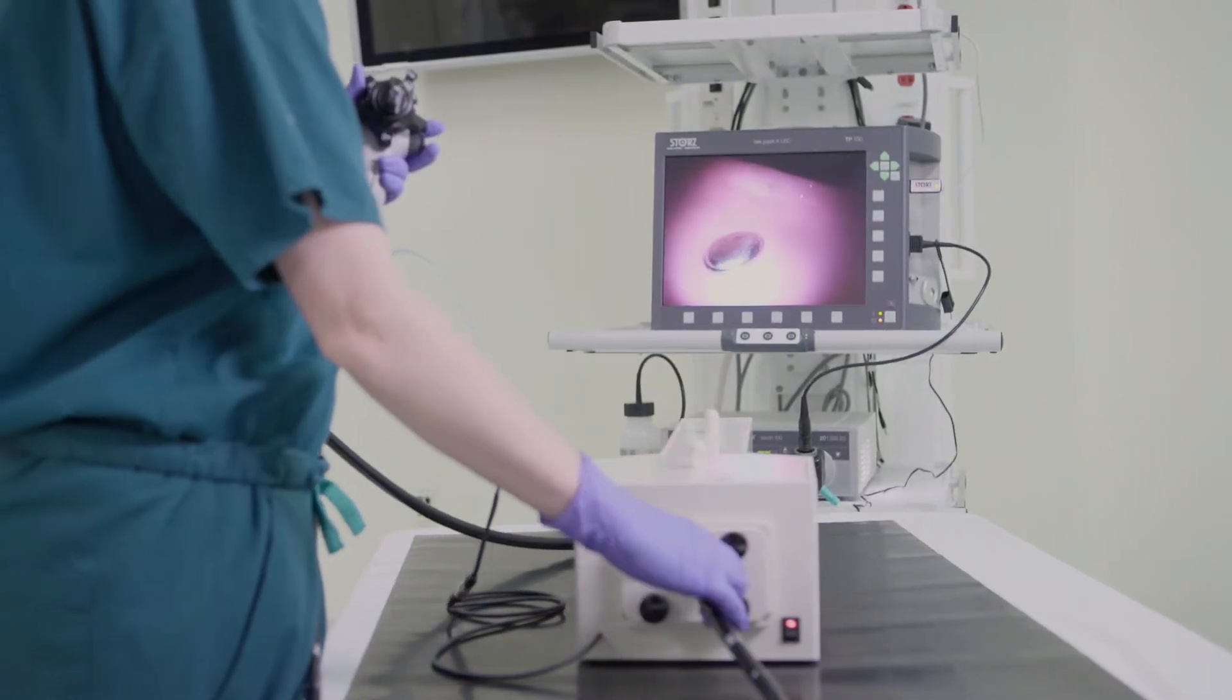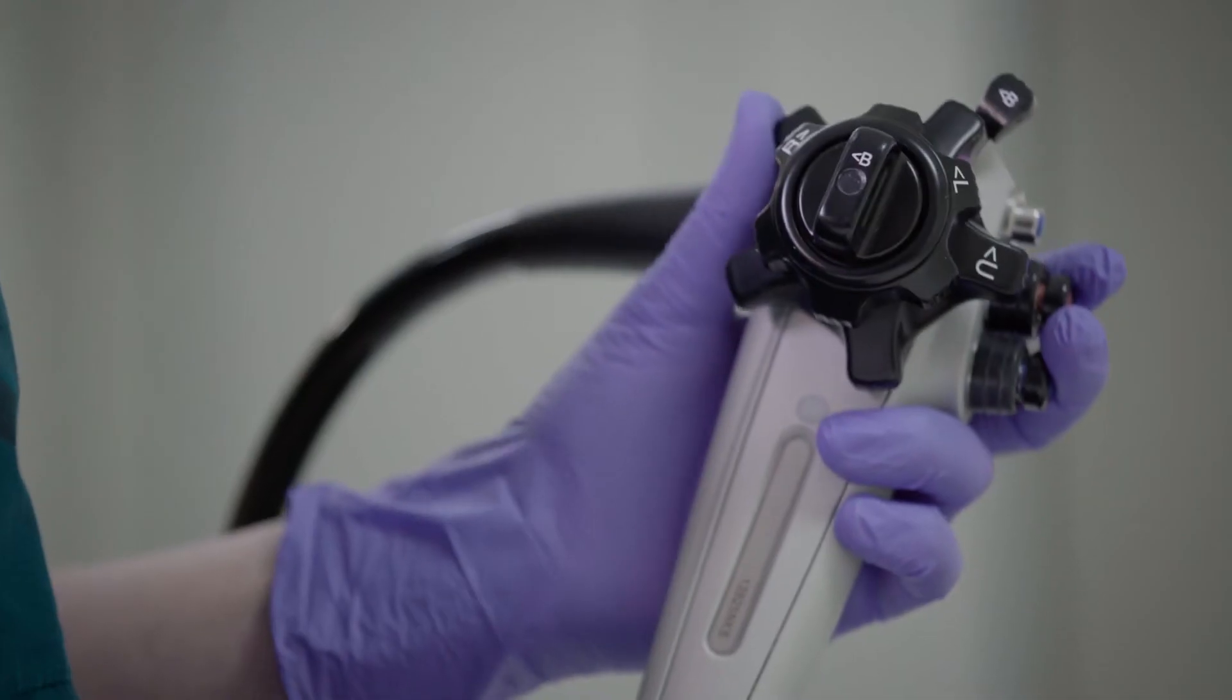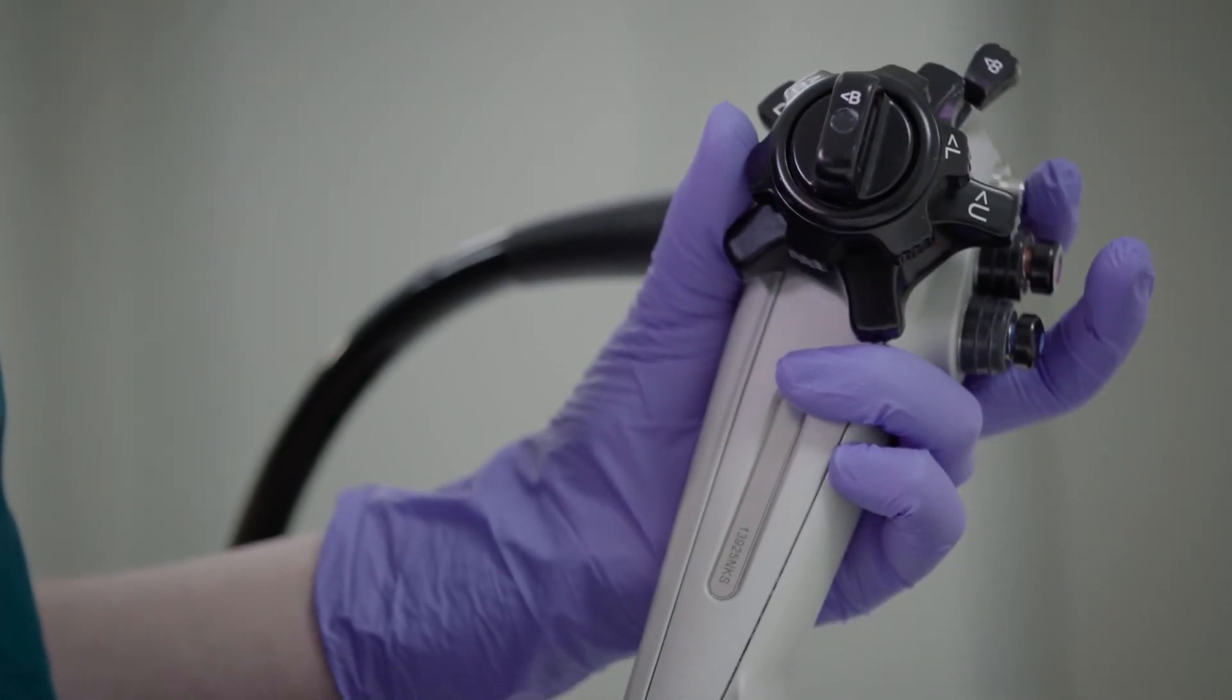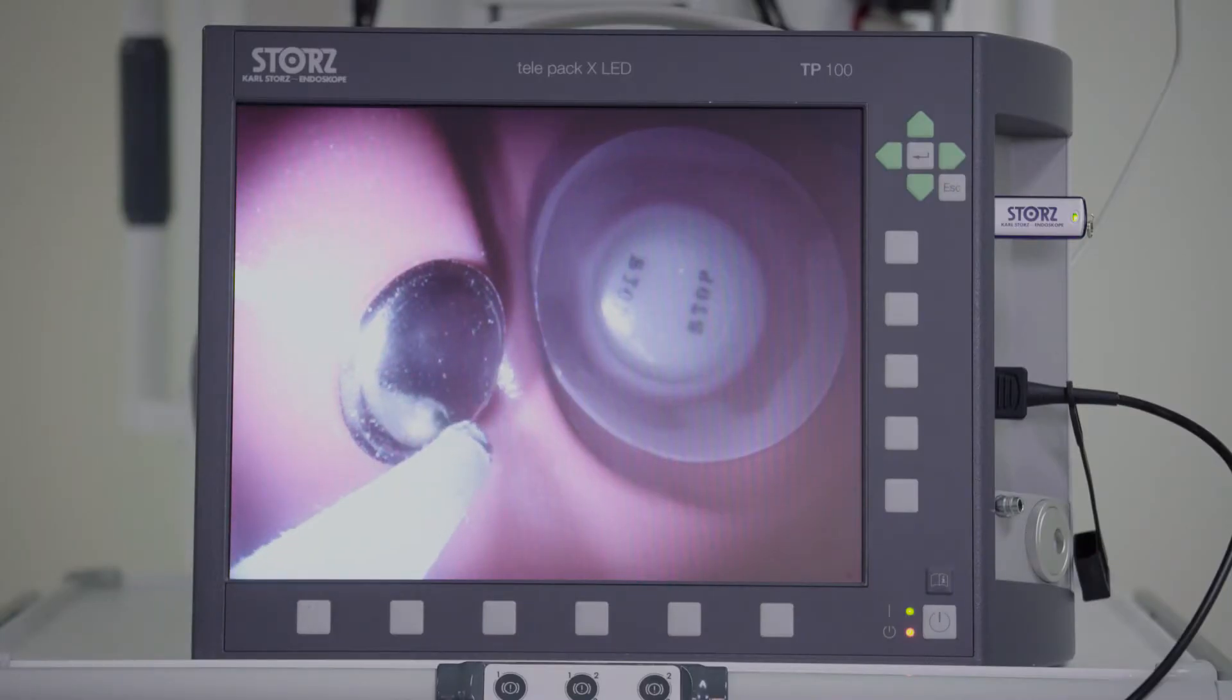Learning the skills of hand-eye coordination required for biopsy, the trainee must connect to ten metal discs for five seconds each using the simulated biopsy tool.